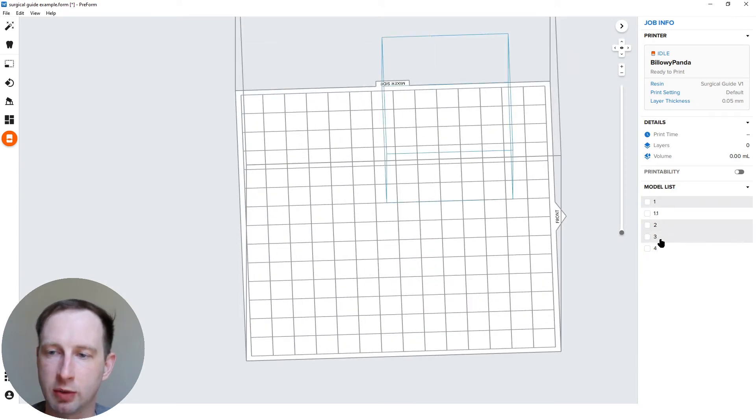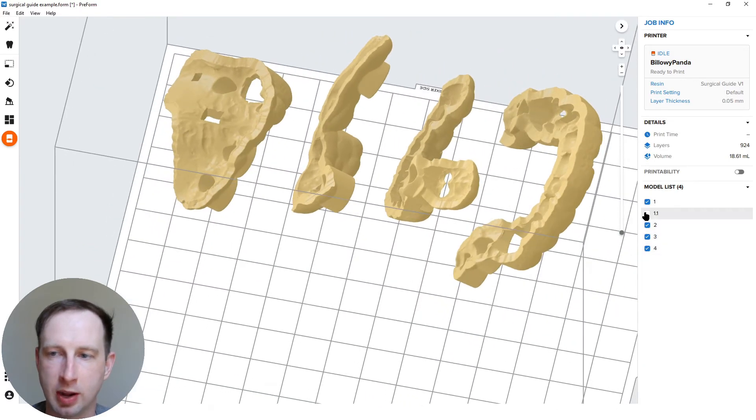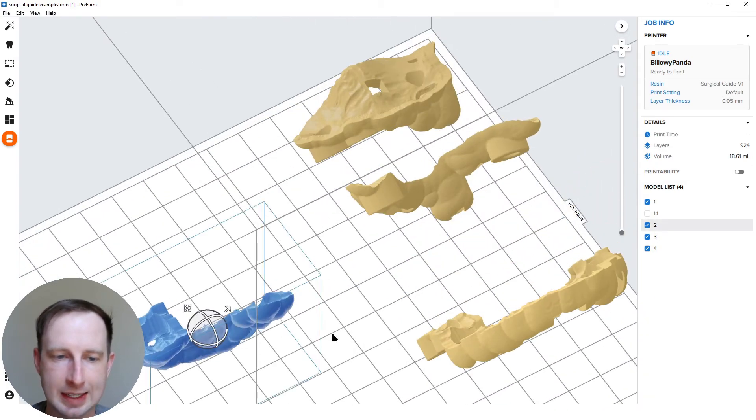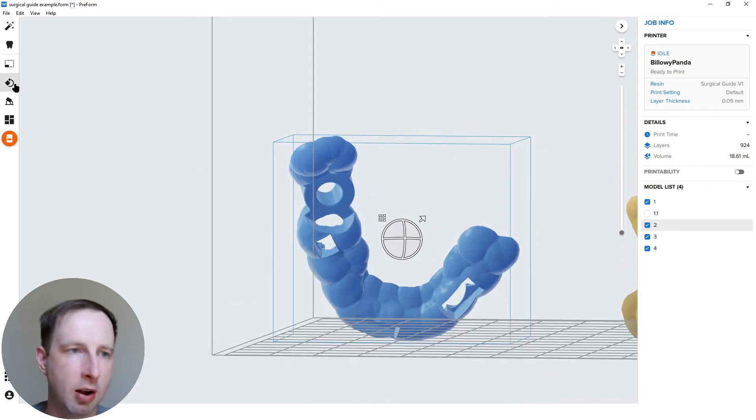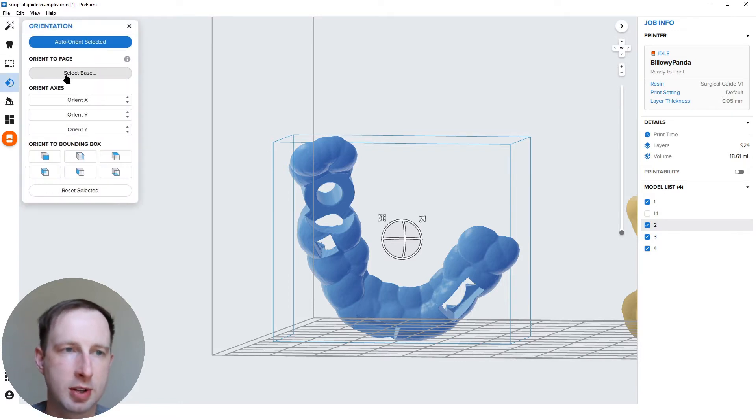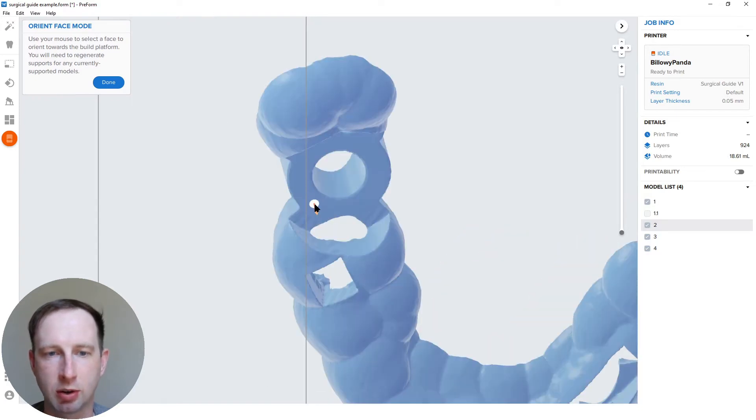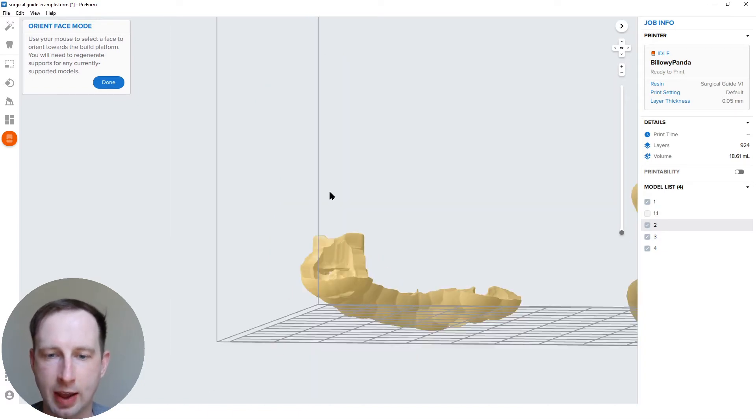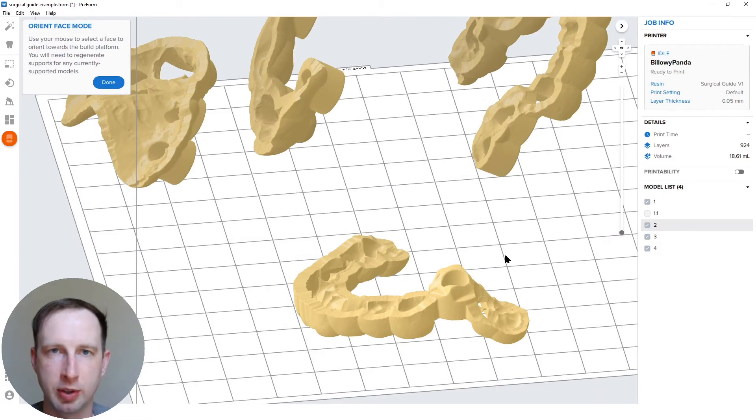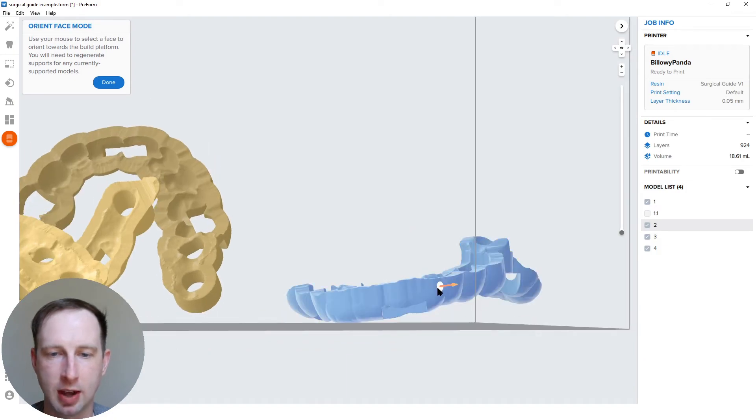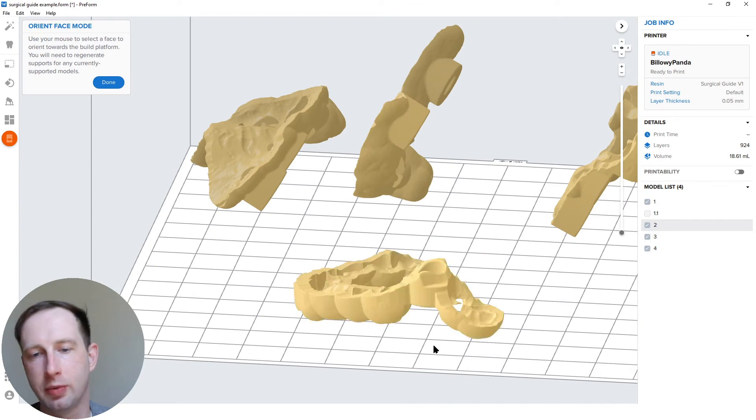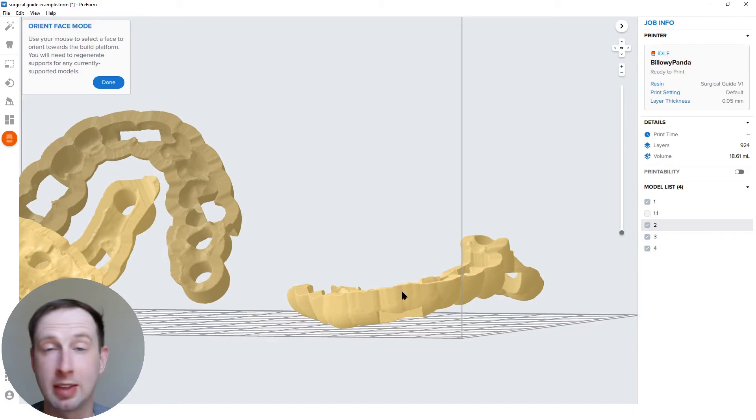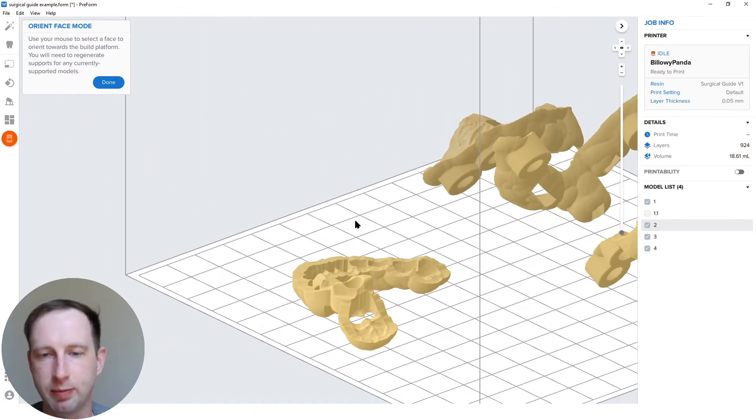So let me turn on the four examples I got here for everyone. This is a bit like a cooking show. I got them all wrapped up here in my model list. I'll show probably the simplest and easiest, the one I just had, because it's a single site implant. I'm going to take my orientation button over here on the left-hand side of PreForm, click that open, select base. One of my favorite tools in PreForm. Click on that and I'm actually going to select or click on the surface, the flat surface of the guide itself. This is typically at a 90 degree angle from the hole generated in the guide. So if you click on that, it snaps it down perfectly perpendicular to the build platform. Single site, you check out the angle of the guide. It is a little bit angled, but I would take that perfect perpendicularness over this amount of angle any day. If it was like double this, I would say maybe I pick the in-between to get the best results here, maybe angle it a little bit. But for this one, done deal.